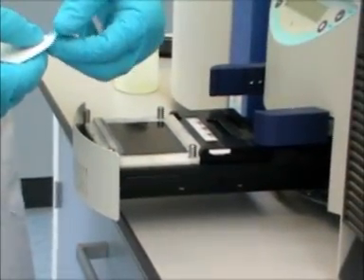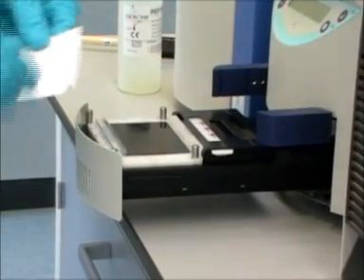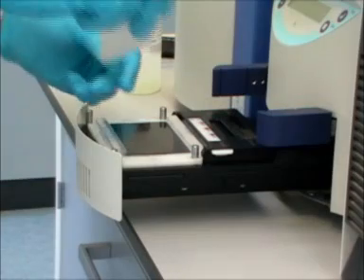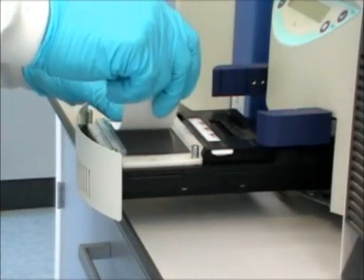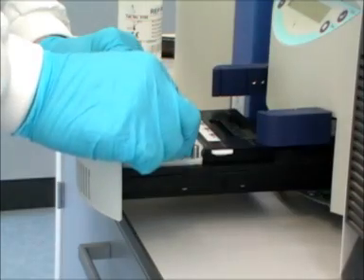The gel surface is then carefully blotted to remove any excess buffer and to ensure that when the samples are applied, they enter the gel surface.